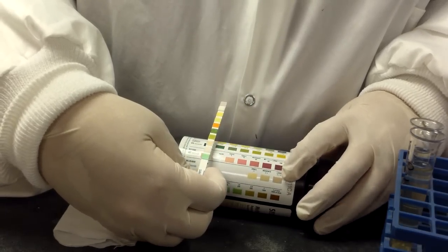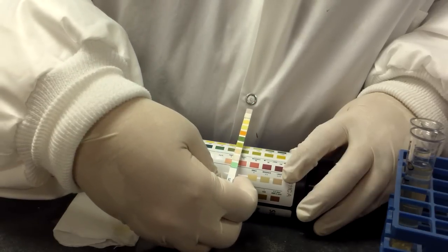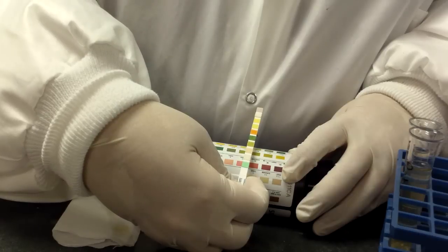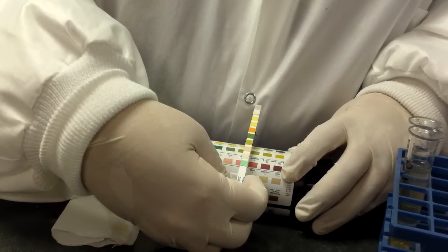Then we will line up the specific gravity. And again, all you do is just find the color it's closest to. If it's between two colors, pick one. It's not that vitally different.